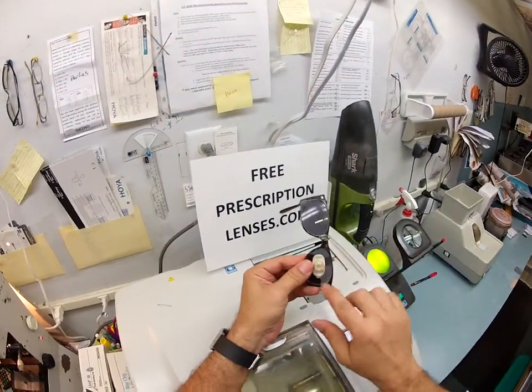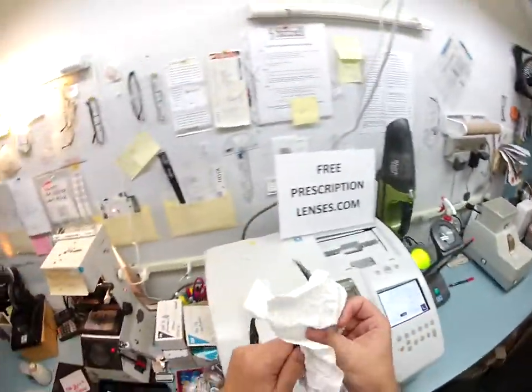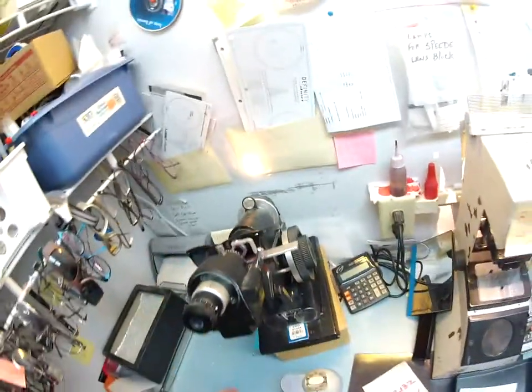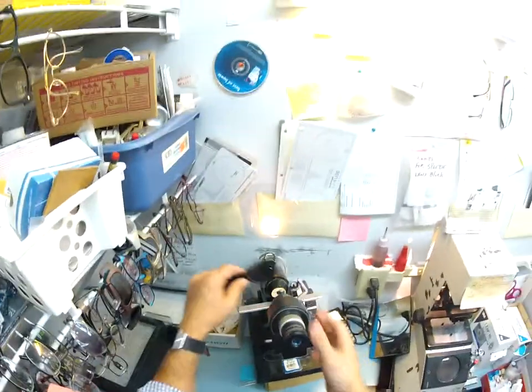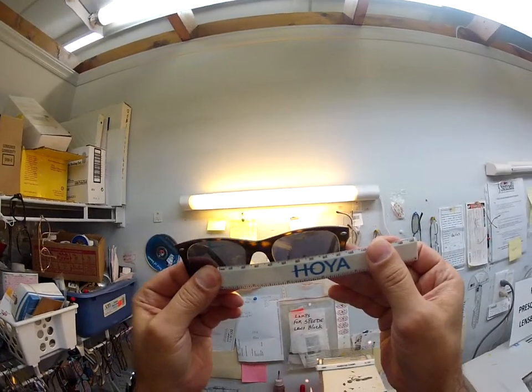In order to check the left lens, I'm going to tuck it in at the outside corner and then using my thumbs press down at the nose and it snaps right in. I'm going to spin the axis wheel back to 80 and verify that these were cut correctly. Put it in over the red dot — and I'm reading plus 175. Check your astigmatism correction, which is minus 150. If you have plus 175 minus 150, you have a quarter left, and that's just one tick mark above zero — so we're good there. Your pupillary distance is 64, so I'm going to hold the zero up on your right lens and when I put it up over your left lens, the GoPro camera will show that it is 64 millimeters. So that is cut perfectly as well.